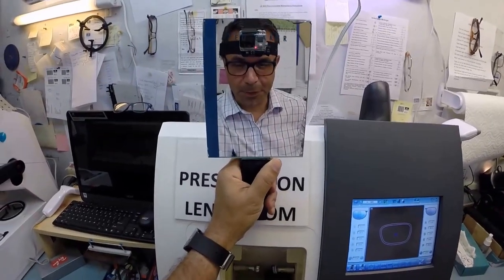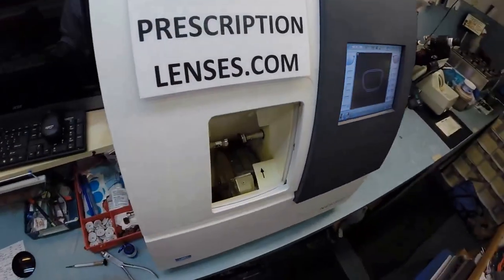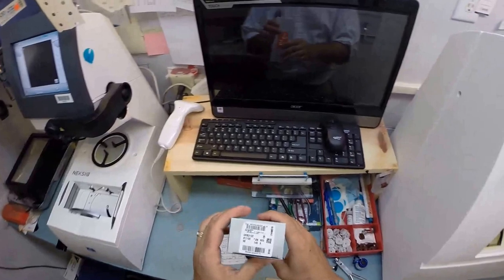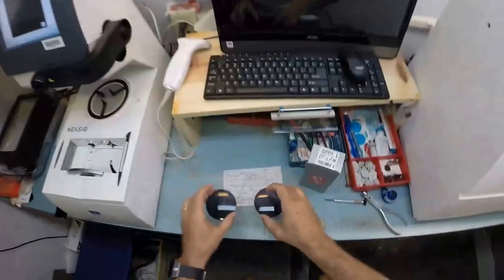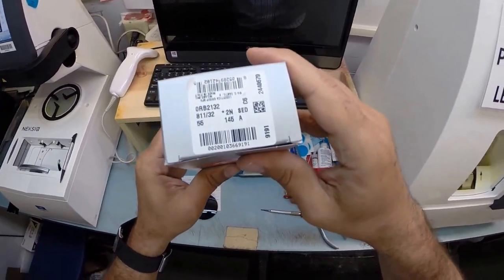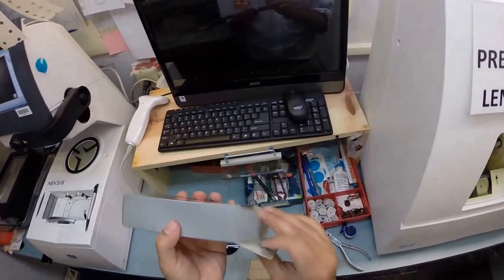Hola Luis in Greensboro, North Carolina. Matthew Matteo here at FreePrescriptionLenses.com and with the help of my GoPro camera, I'm going to show you how I cut gray sunglass lenses for your new Ray-Ban 2132 New Wayfarer color 811, which is the blue rubber in the 55 eye size.